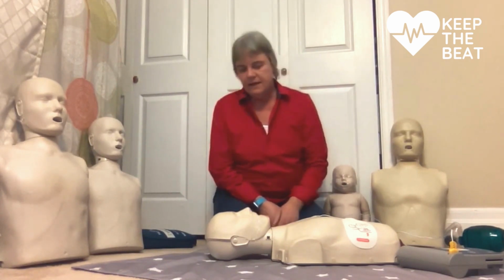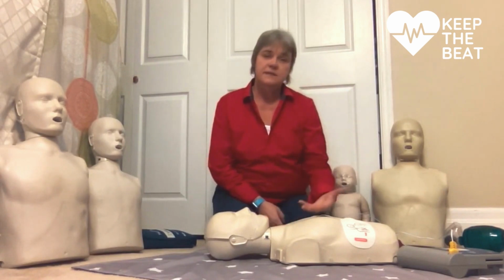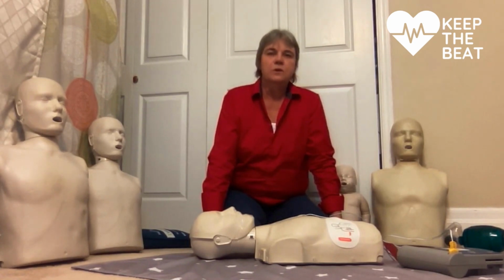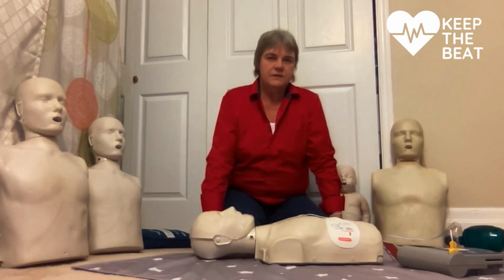We should be at about 2 minutes. And again, CPR is being performed. Stay clear of patient. I'm clear, you're clear, we're all clear. Analyzing heart rhythm. No shock advised. Paused. If needed, begin CPR. So no shock was advised.